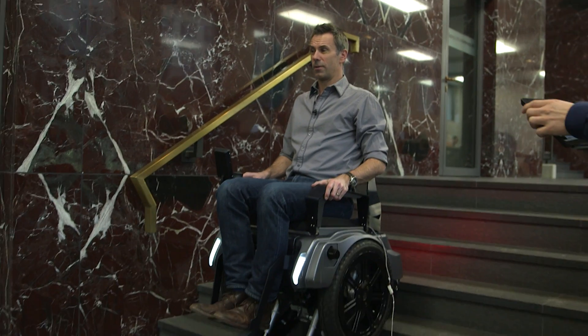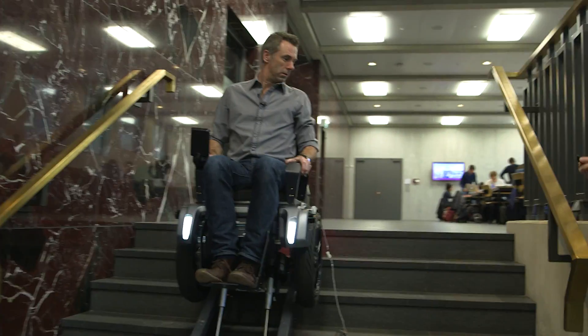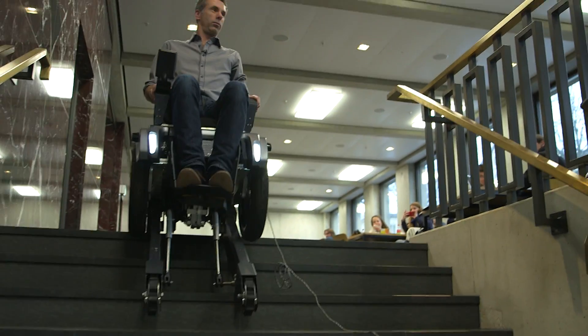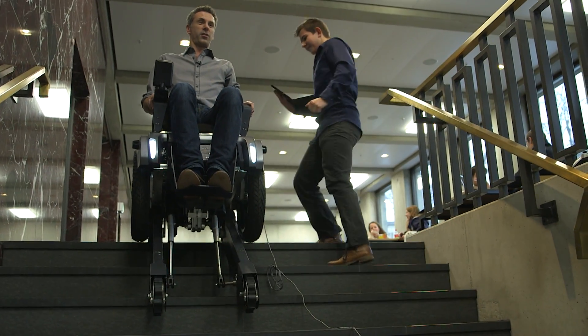Yes. Let me see if I can make it a little bit faster. You don't have to make it faster. I'm not sure if it will work. Let's make it 75. Whoa. Wow. I think this is half speed or full speed, but it's difficult to control. That's fast enough.